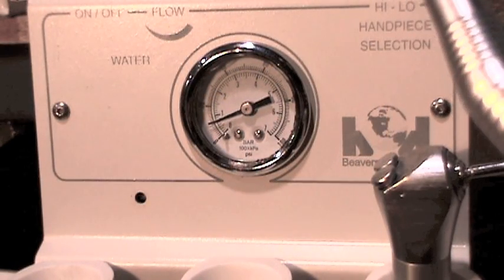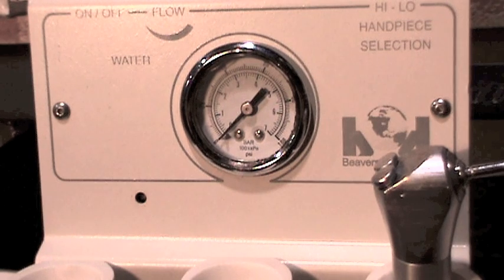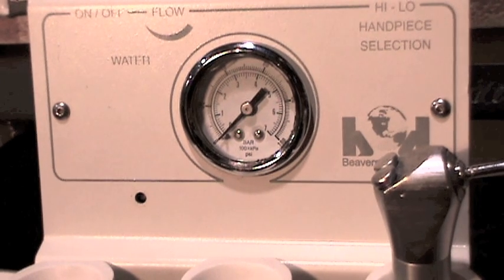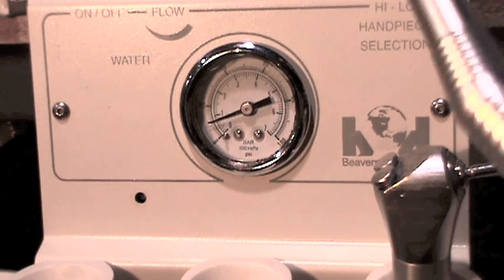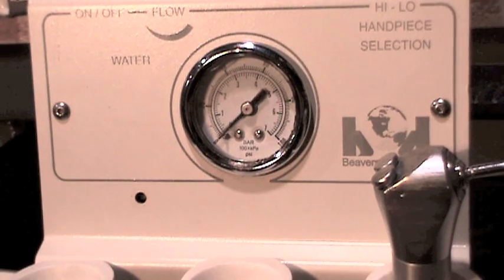This beaver state unit is only reading 15 to 20 pounds of pressure which seems a little low. Be aware though that the pressure that you read on the gauge of the unit can differ by up to 10 PSI.